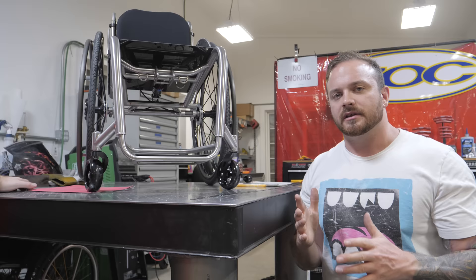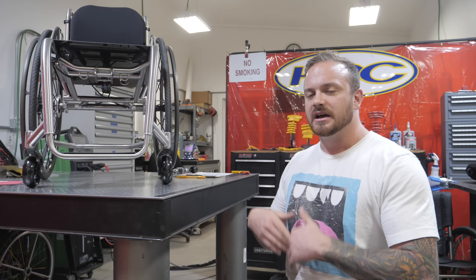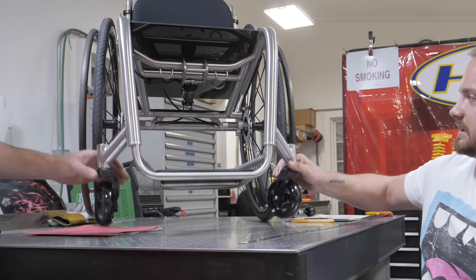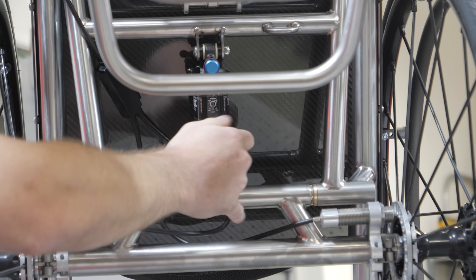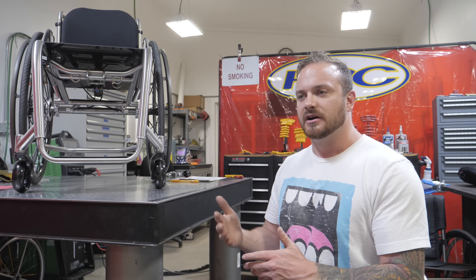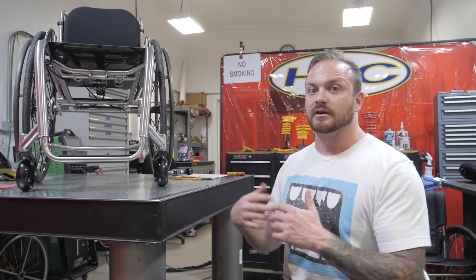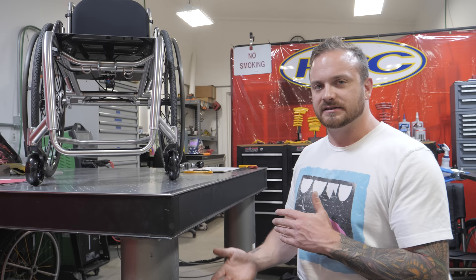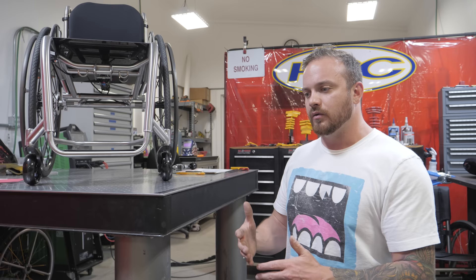Next we're discussing what kind of wheelchair I'm actually going to get from Hands-On Concepts. Initially I was drawn to the Monoshock chair because it looked cool and two friends who use it won't stop shouting its praises. However, the Monoshock system is a little bit heavier than the traditional rigid frame. The guys here were talking to me about the pluses and minuses — they talk more people out of the Monoshock because a lot of people think the benefits are there for little small things like rolling over a branch, but the real benefits come from more aggressive use.